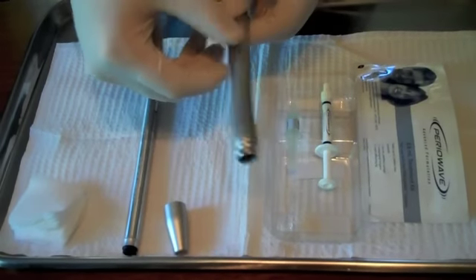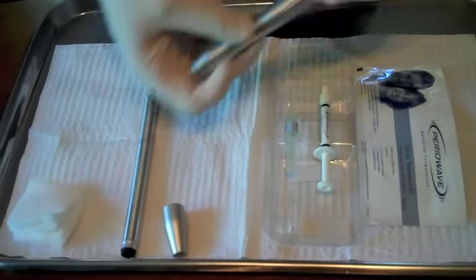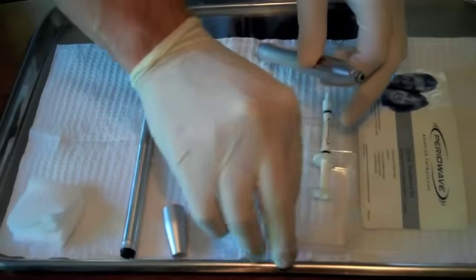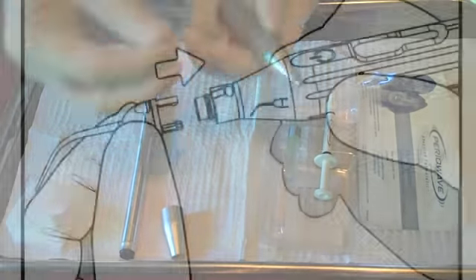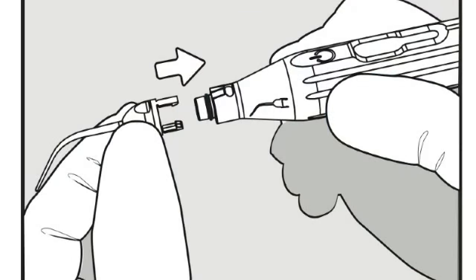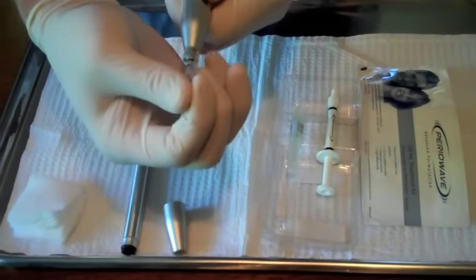Having just removed your autoclavable sheath from the autoclave bag, it's important that you first install the light diffusing tip. You'll note that there is artwork on the side of the sheath to indicate which way to install the tip.